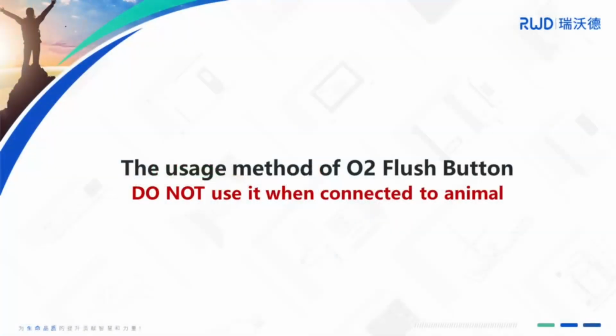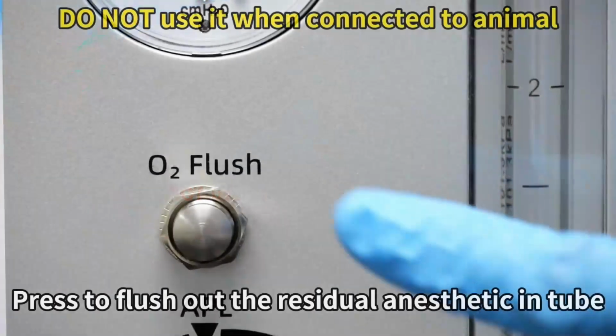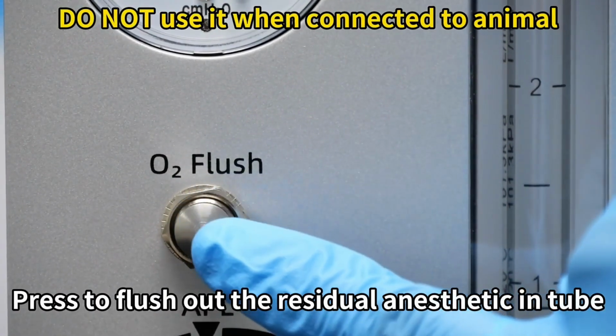The usage method of oxygen flush button. Do not use it when connected to an animal. Press to flush out the residual anesthetic in the tube.